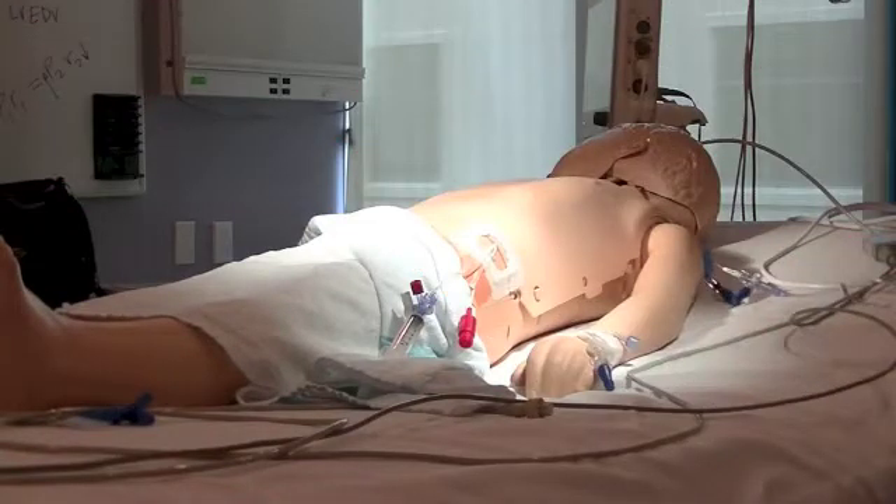The procedure for assisting the physician in placing these catheters — the central venous line and PiCO arterial catheter — is dependent on your own facility's protocol. Now let's begin the setup process.